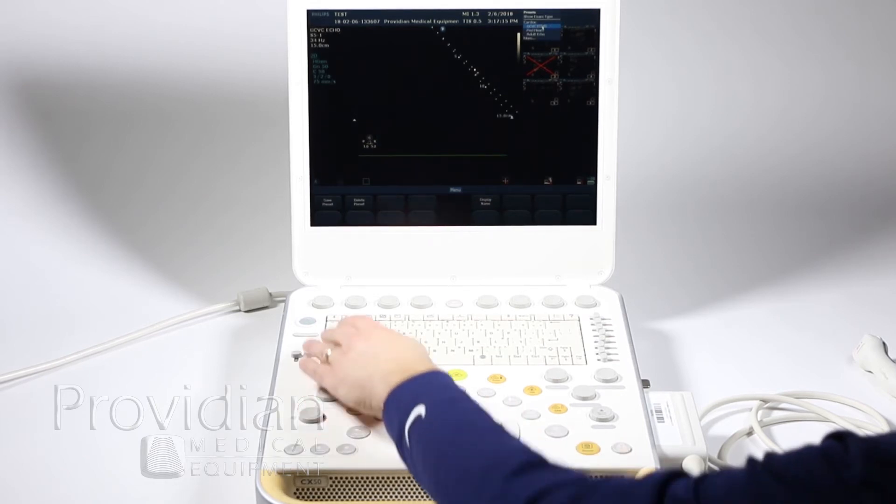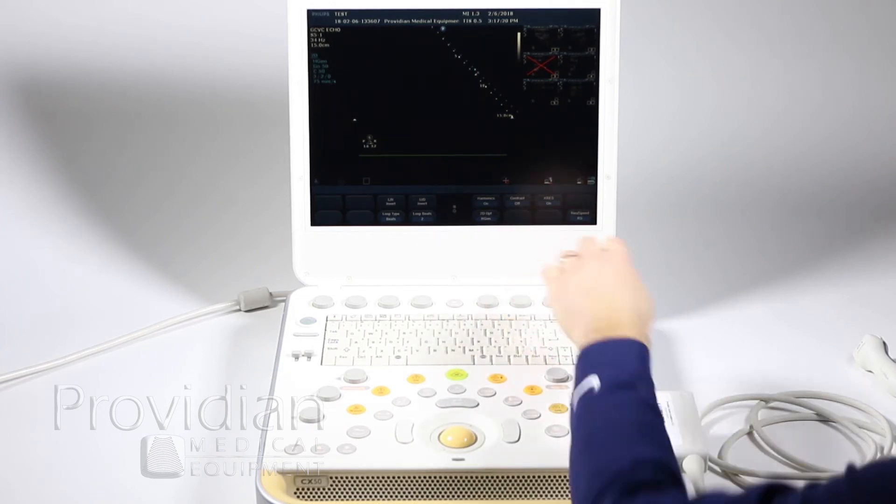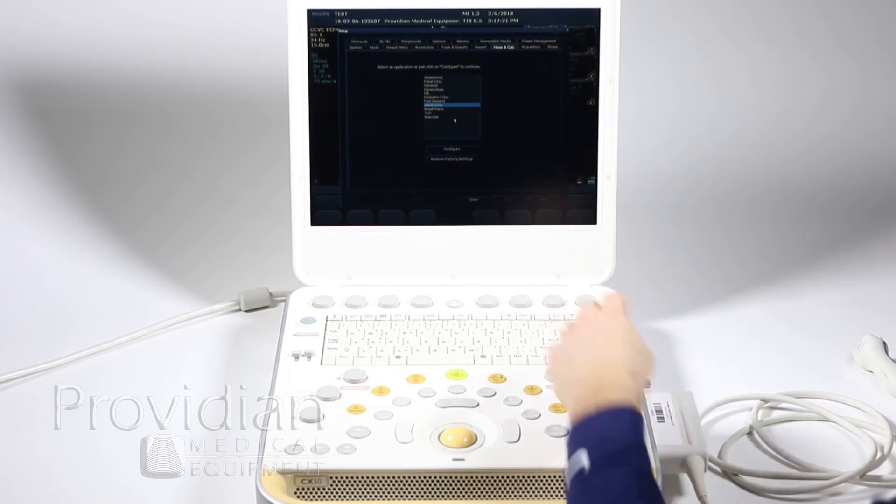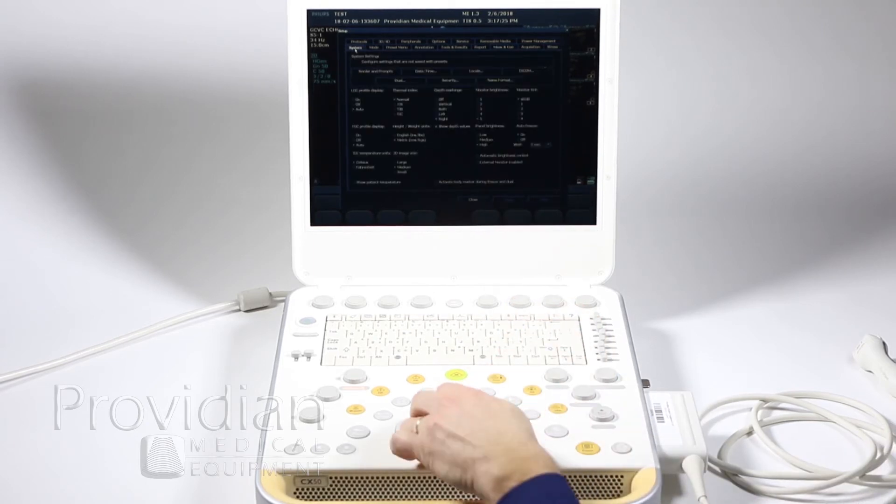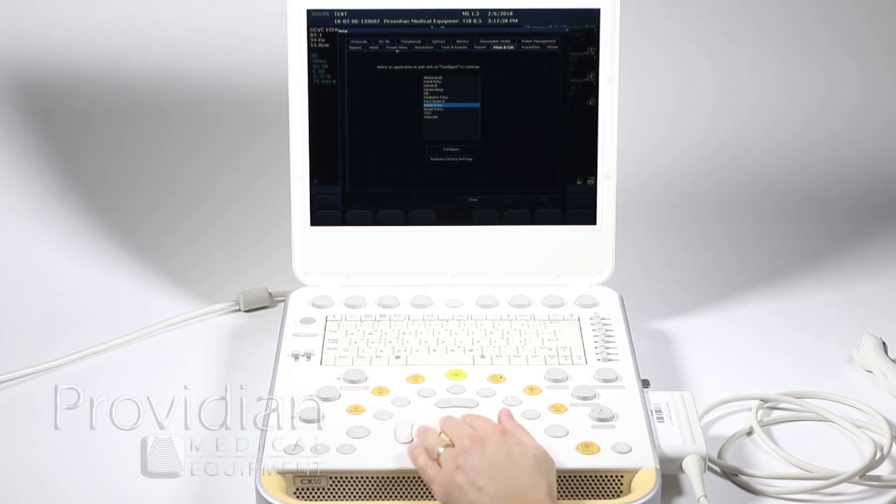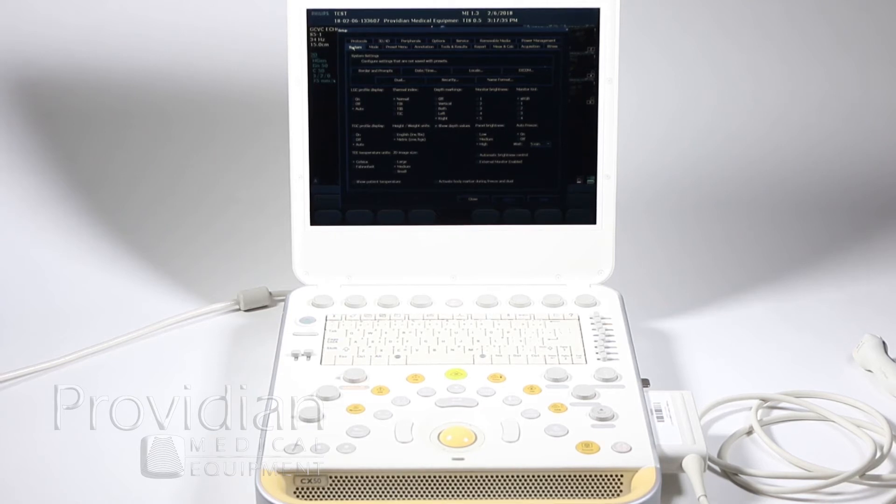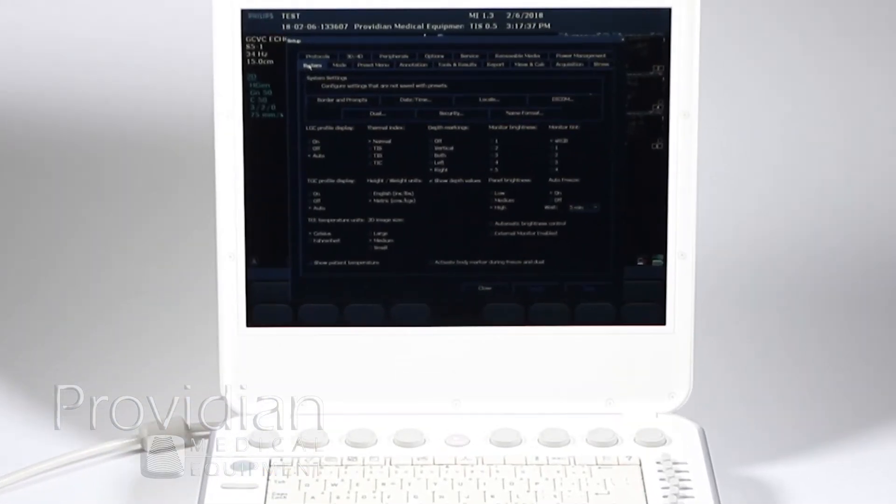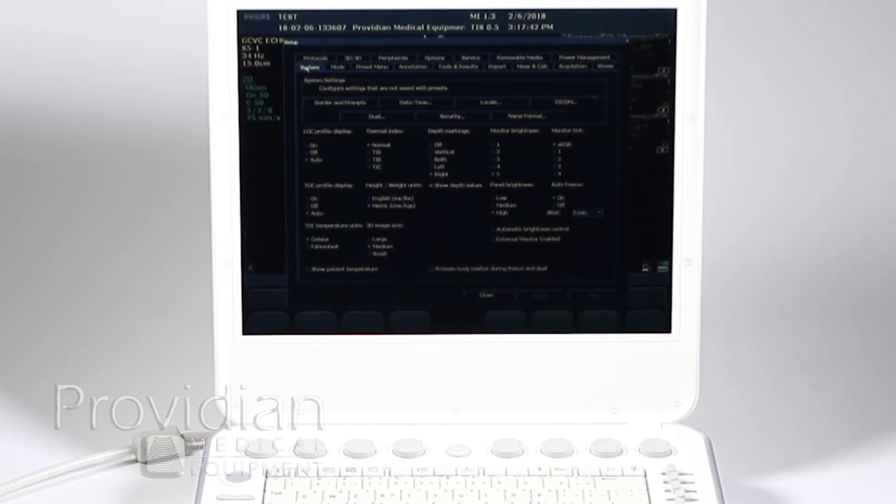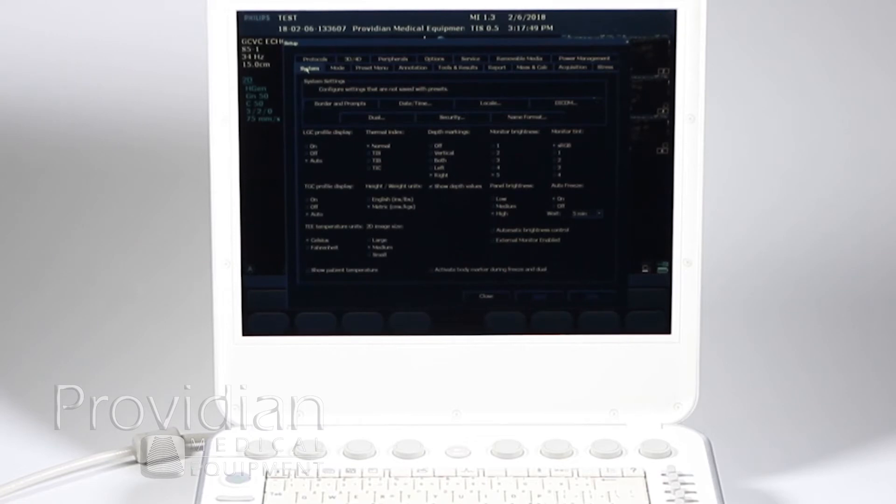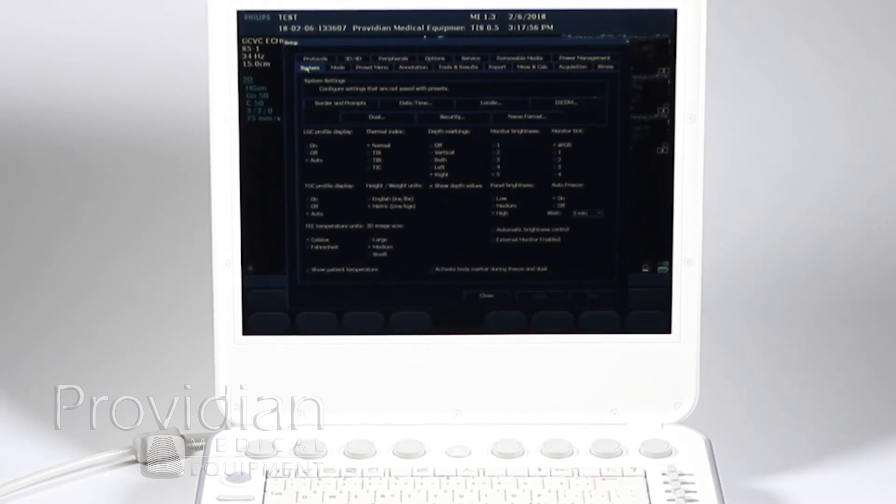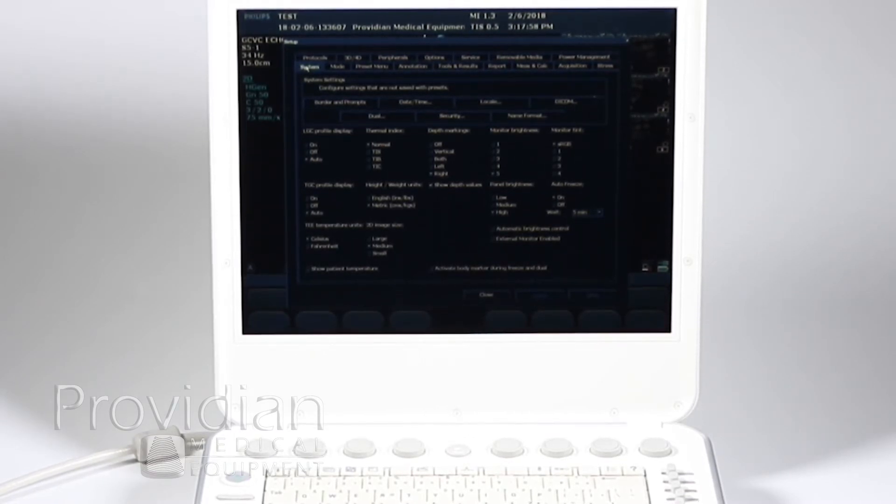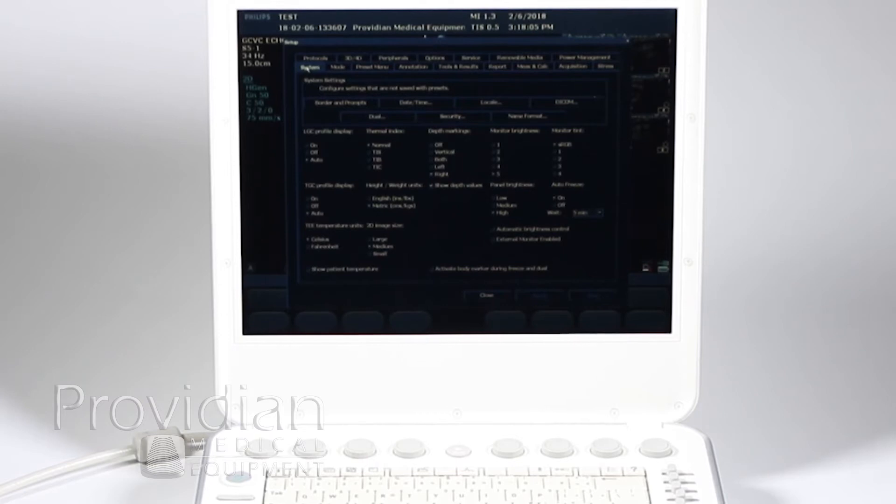Let's go ahead and get into the system setups. Now the CX50 would start here on this system. If you had changed the measurement and calcs like we did earlier it's going to pop up to that screen. So go back to system and choose that system tab. This is a fairly complex system to set up so might be a good idea to go through all this just to know how powerful this system is. What it does well is it explains many of the features, saying okay if this goes wrong you can do this.